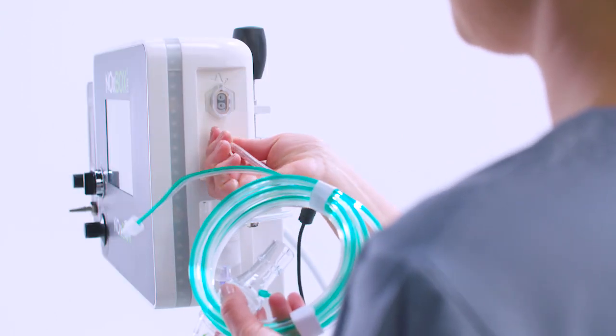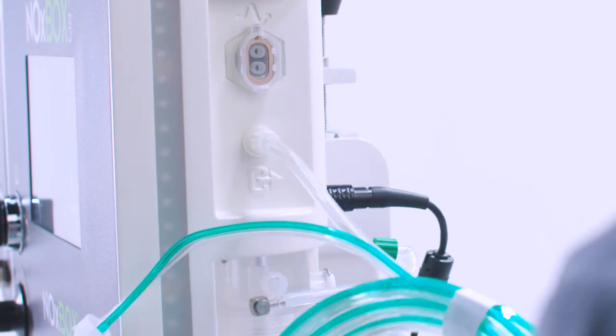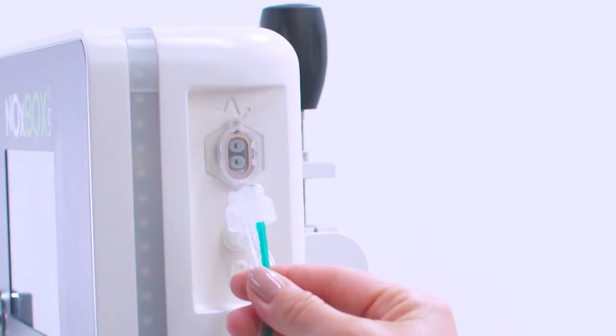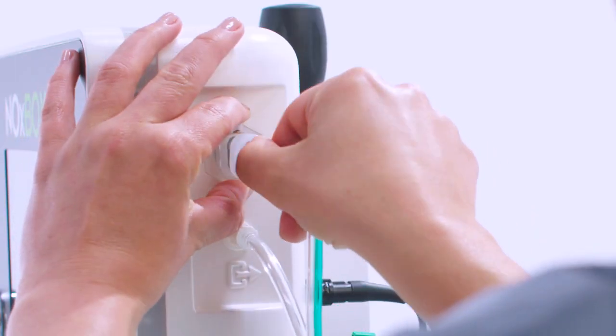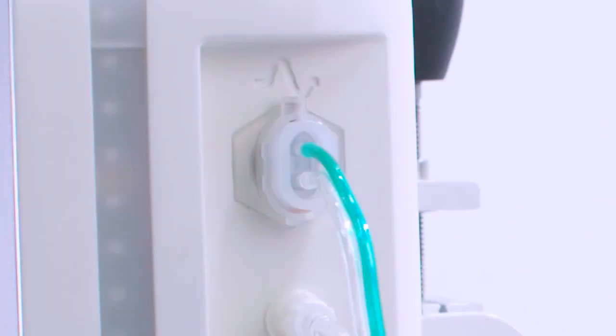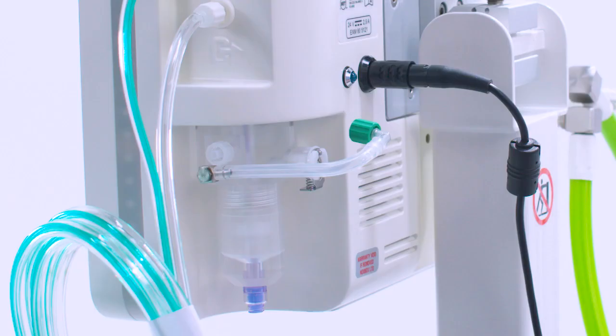First, connect the nitric oxide dose line to the nitric oxide outlet port on the NOxBOXi device by rotating the male spin lure clockwise to secure. Next, connect the twin-port flow detection connector to the NOxBOXi socket. Ensure the green line is at the top and press the locking button for easy installation. Once installed, allow the locking mechanism to secure the connector and gently tug the tubing to make sure it's secure.